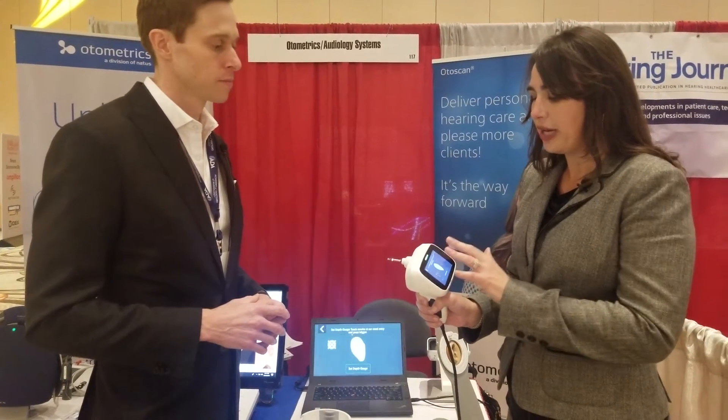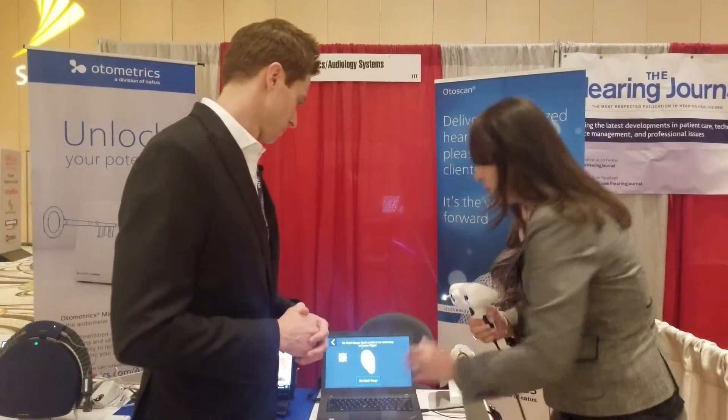What we have here is the handheld scanner. It is actually a touchscreen. There are two lasers — it's very important. We have a ring laser that goes into the canal, covering the curvy areas of the canal and the outside of the ear curve. Then we have a second laser, which is a line laser, for the flat areas. We also have two cameras here. The patient will actually be wearing a headset, because when the scanner goes in, it needs to know where it left off when it goes back in — basically a GPS tracker for the scanner, since the dots are unique to it.